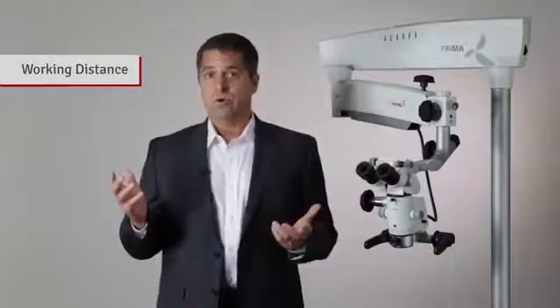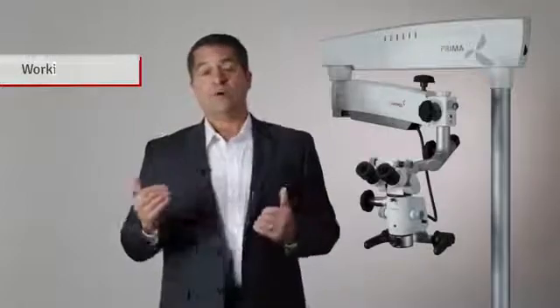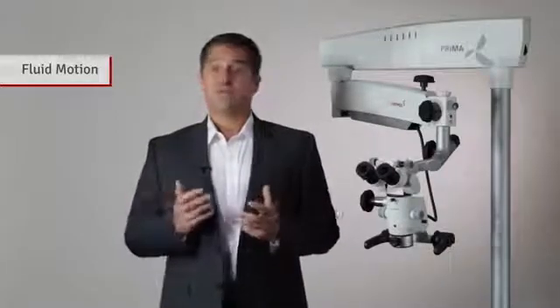The Prima provides a range of options in terms of working distance, in other words, the distance between the microscope and the subject. In terms of fluidity of motion, this microscope is second to none thanks to a well-designed suspension arm and carrier system.